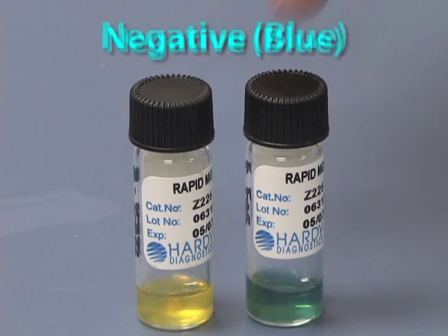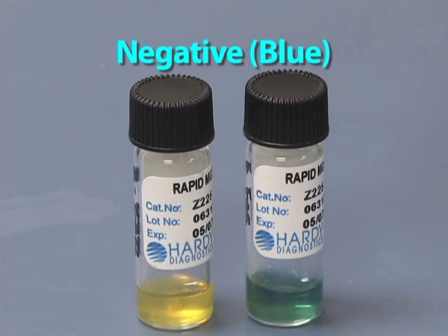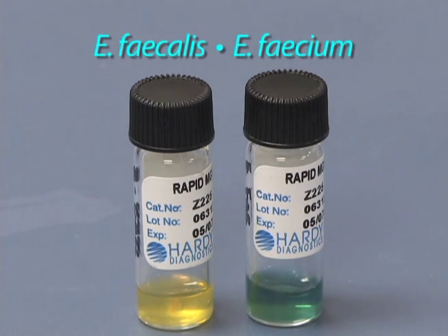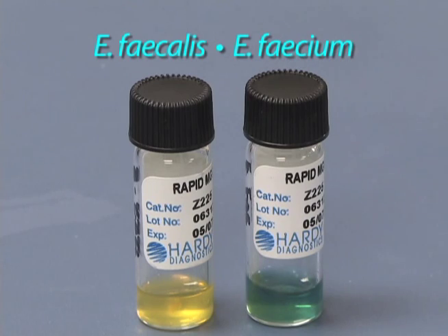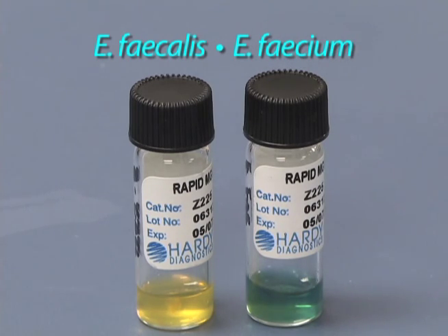A negative result, which remains blue, will indicate that you have either Enterococcus faecalis or faecium, which may be pathogenic.